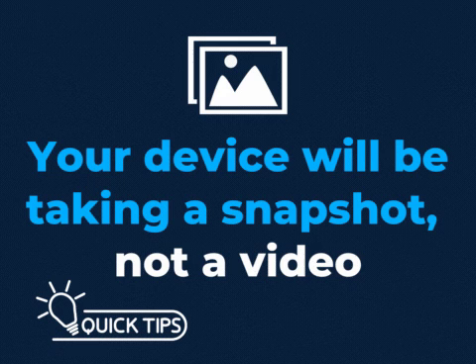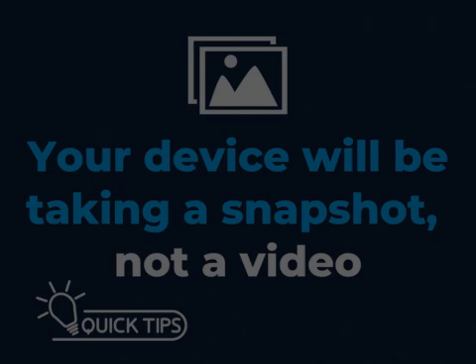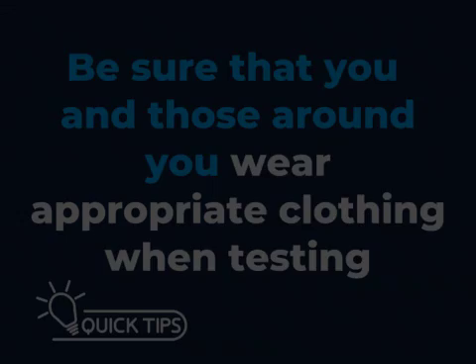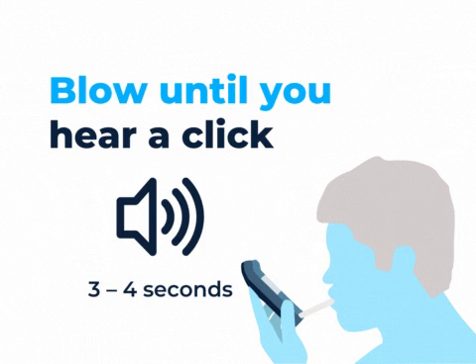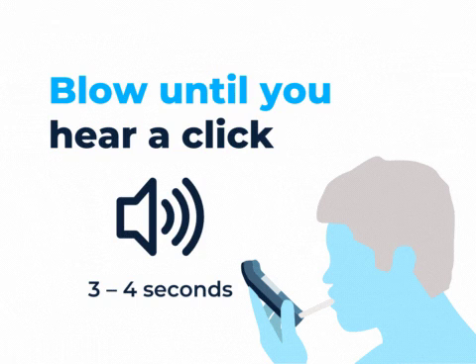Your device will be taking a snapshot, not a video. Be sure that you and those around you wear appropriate clothing when testing. Put your mouth around the mouthpiece only enough to fully cover the end, then blow until you hear a click. It should take from 3 to 4 seconds.